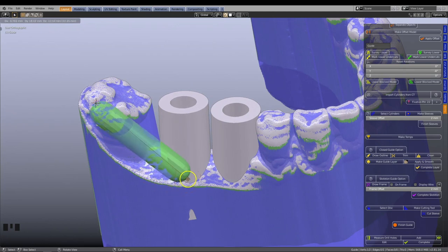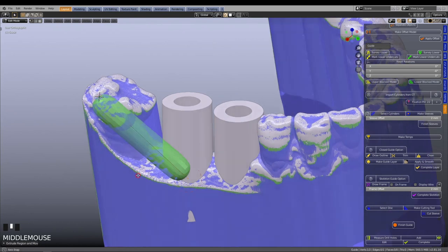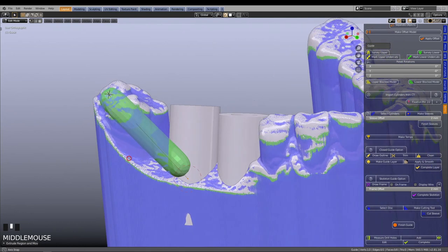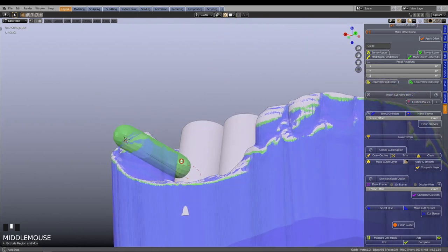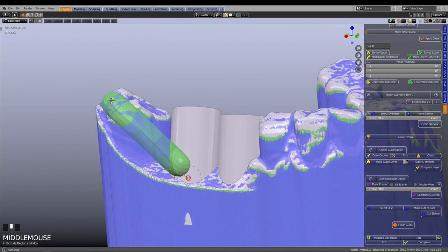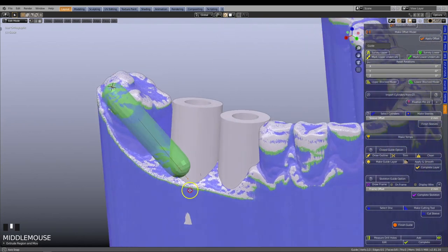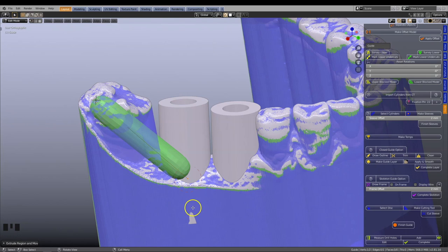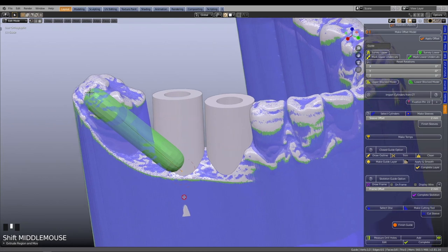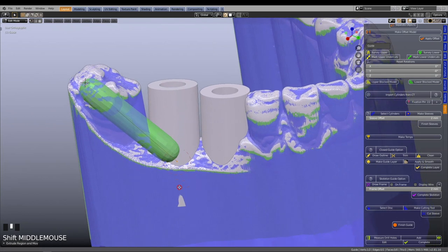By left clicking you can set down the line. In the upper part of the 3D working window, notice how the magnet tool has been invoked. This means that the extrusion will adhere to the closest surface. The closest surface is defined by a preset value of 2 mm.